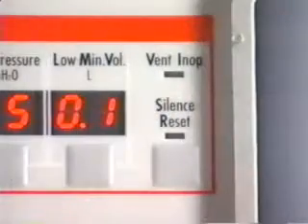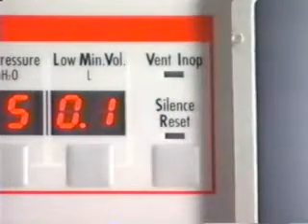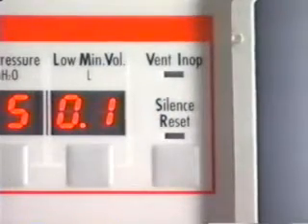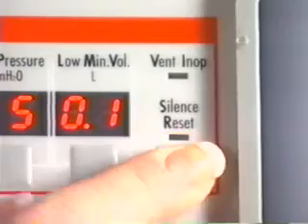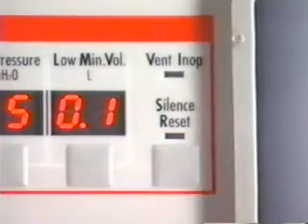Pressure is less than the low pressure setting. To reset the low pressure alarm, press the silence reset button twice.